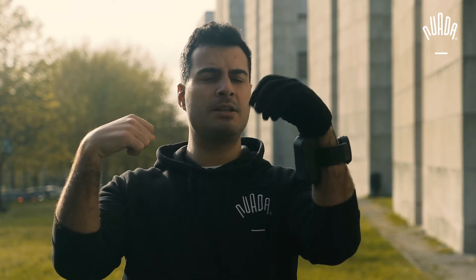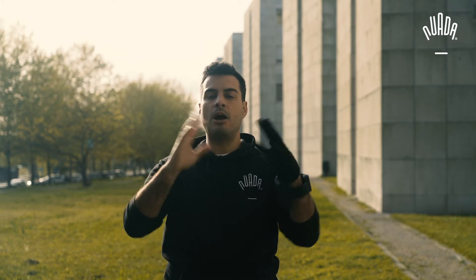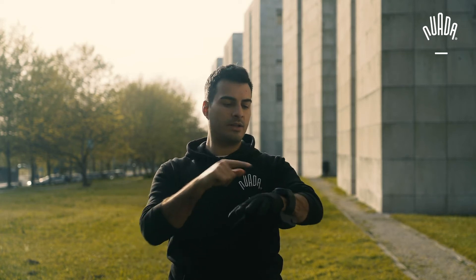In this position, when I'm holding the object, I can relax my hand and I'm still maintaining hold. Even if I wanted to, I could not open my hand. So how do I open it? Basically you bend your wrist in the opposite direction like this, and now you can open the hand and return to it being a normal glove. All of these values and gestures are controlled by the user using the smartwatch.